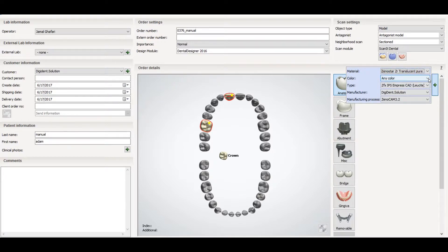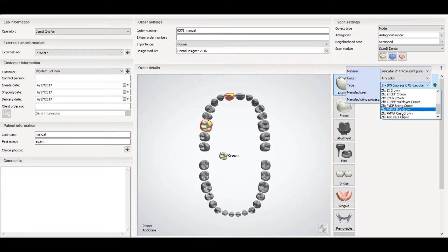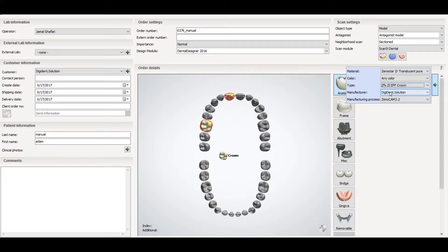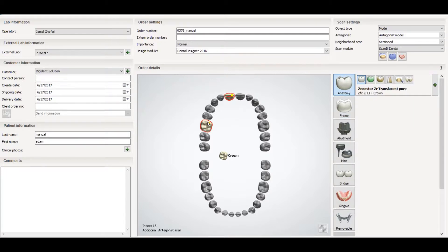Then there is the color — you can select any color, it will not matter. Then you can select the type, which is also related to the material. After that there is the manufacturer and the manufacturer process. The manufacturer process is the most important thing — don't forget to select what you want: STL, CAM, or your own manufacturer process. That is how you select a full anatomical crown.